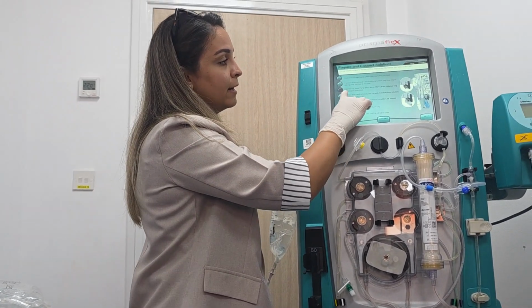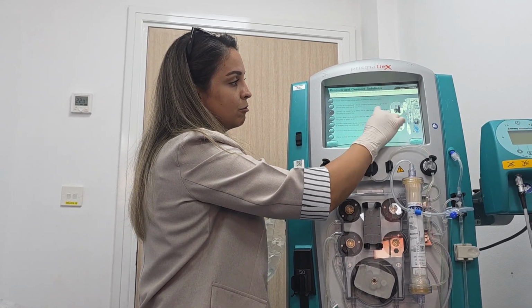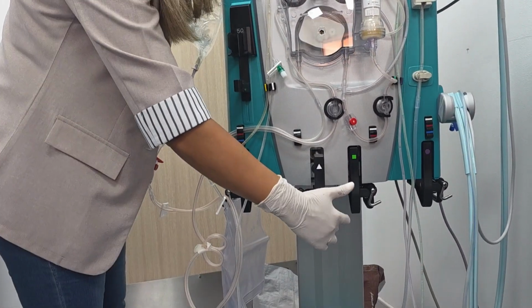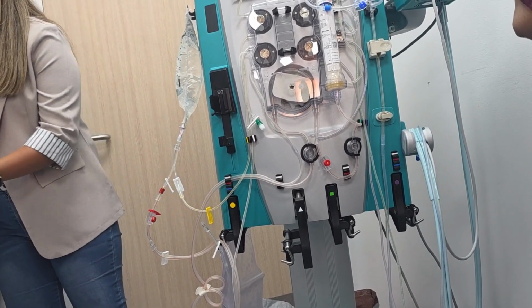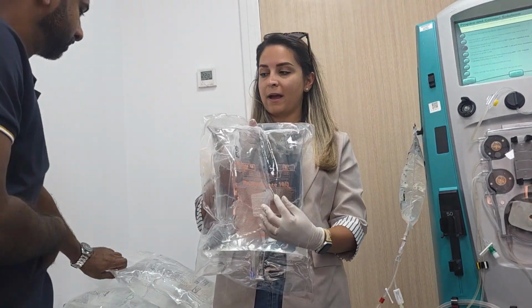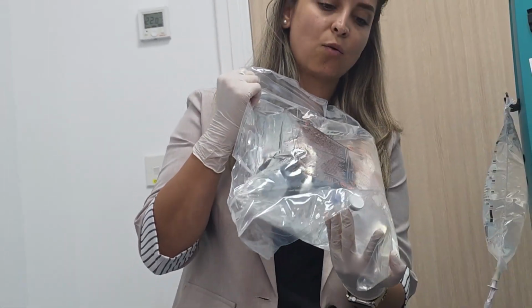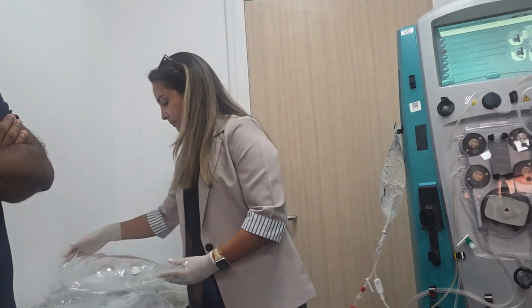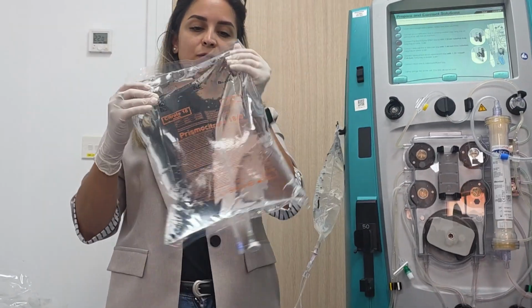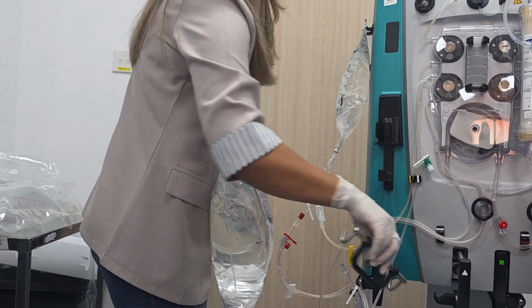Then connect the pre-blood pump line to the PBP citrate solution bag, hang the bag on the white scale. So now it's time to put it on the white scale. White to white, exactly. So we'll go with that. Prismocitrate bag 18/0, it has a white cap at the bottom, okay? The bag is one compartment, so there is nothing to mix. So just take it.